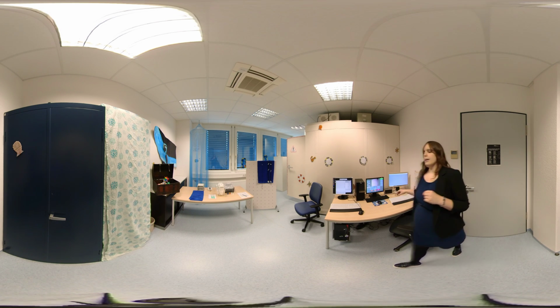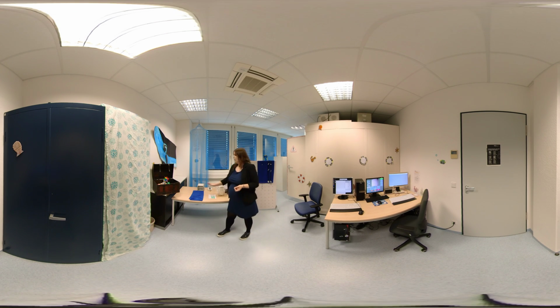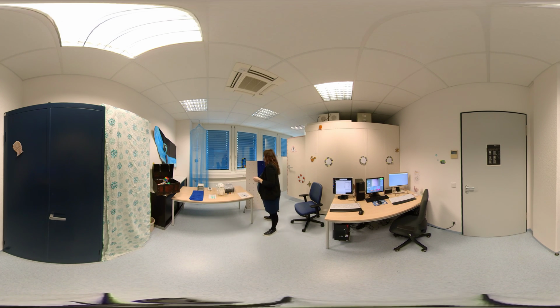Once the computers are set, we also put other things here that we might need during testing later. We put some towels here for testing. We prepare the electrode gel that we will need during testing. We have a selection of different sized EEG caps here for testing. And when we test human participants, we try to very carefully abide by ethical rules so the participants get information beforehand and also need to sign an informed consent, which we already put over here.